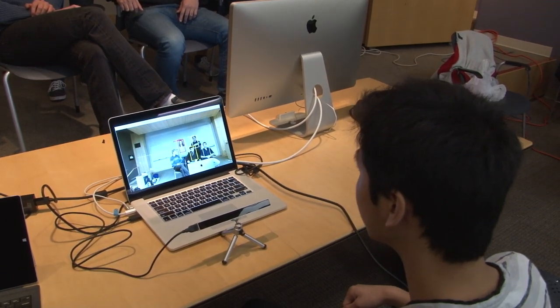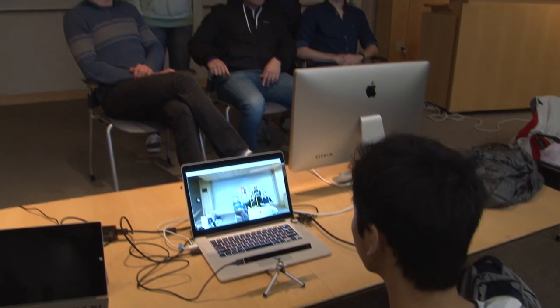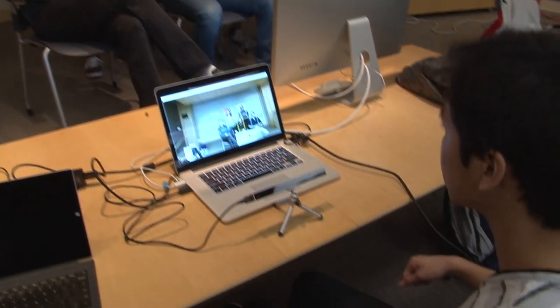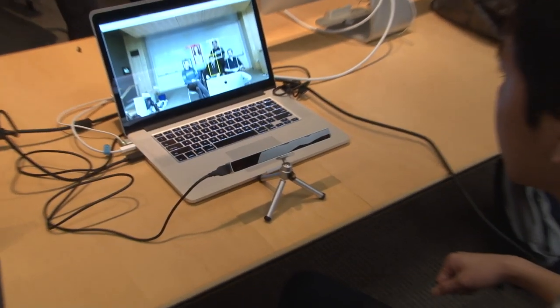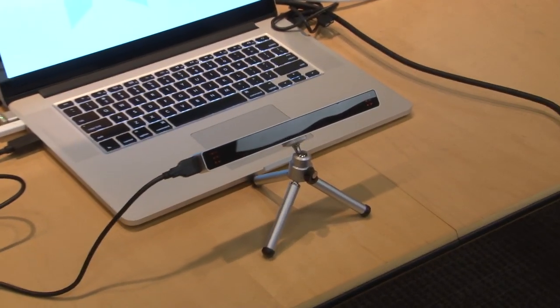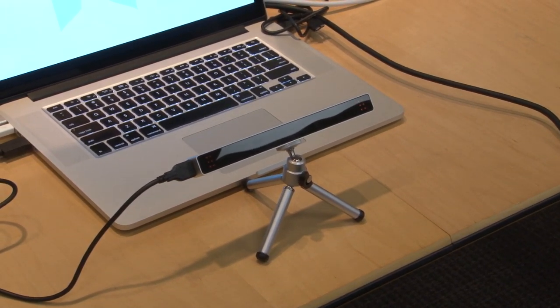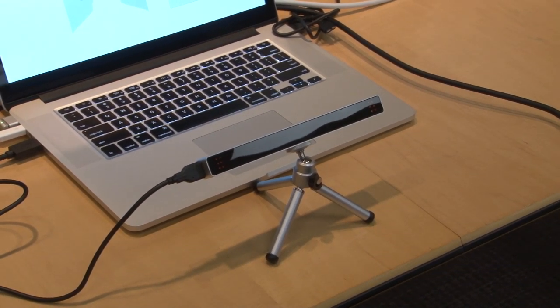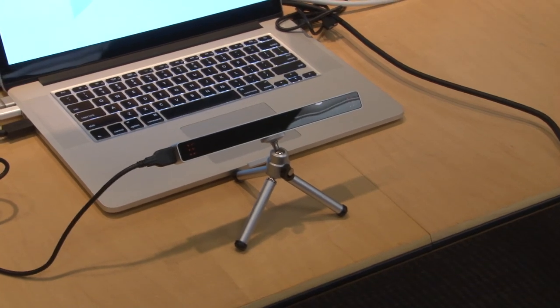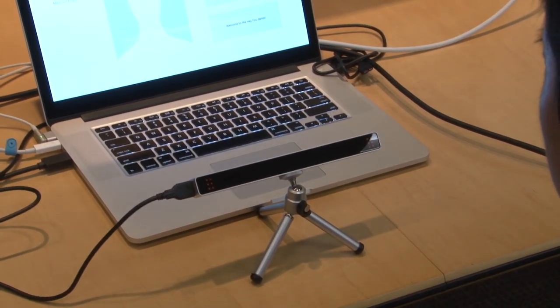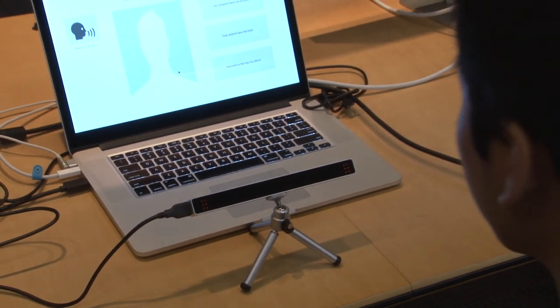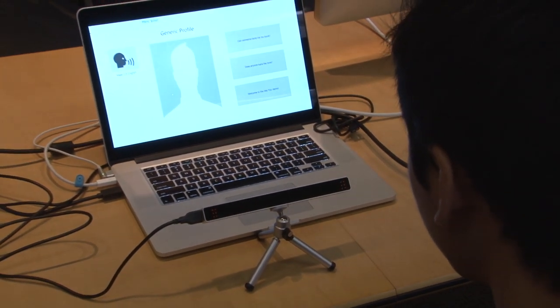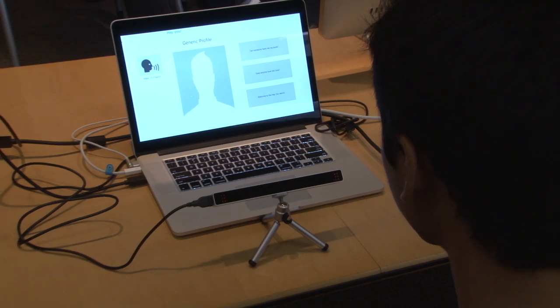Using the Eye Tribe, which is down in front of the computer, we're able to track the position of the user's eyes and write them over onto the screen. Long blink. If the user or locked-in patient looks at a person, you'll see that they select them and the system says their name.